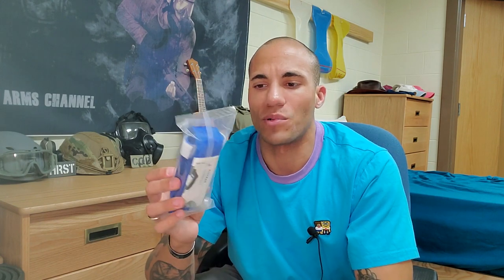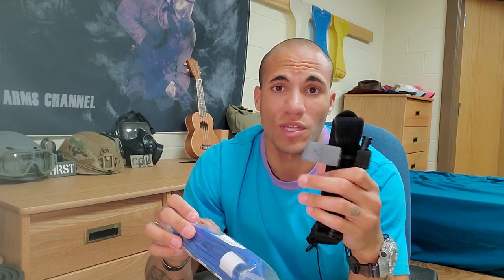On Amazon, they have a bunch of different tourniquets. Some really cheap ones — like $4 or $5 — but those are usually coming from China, and they just don't end up getting to me. So for these videos, I'm going to stick to stuff that's Amazon Prime-worthy. I was able to find a $10 tourniquet. I decided to get blue, just to change it up. The CAT tourniquet comes in blue, black, and orange — they're all the same, just meant for different applications. So let's see how this stacks up versus what we were actually issued in the U.S. military.